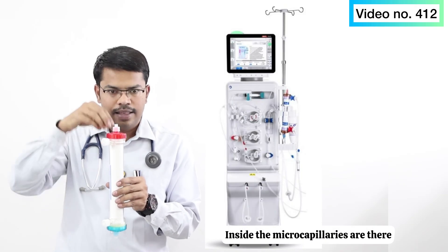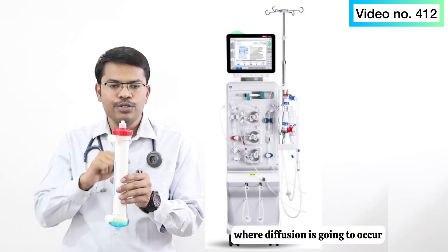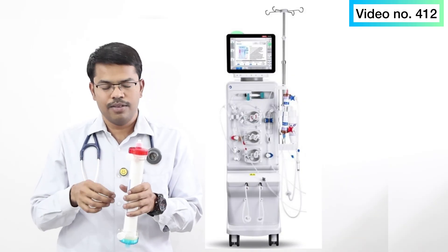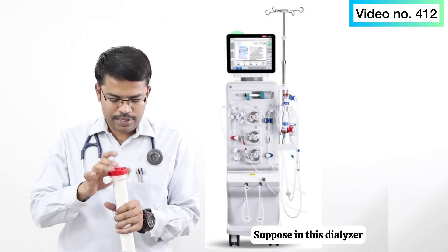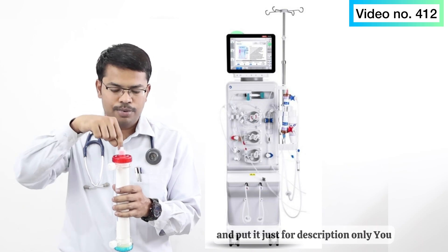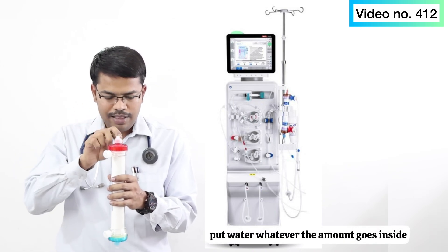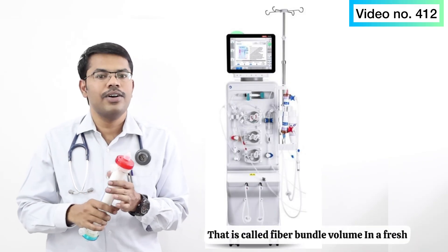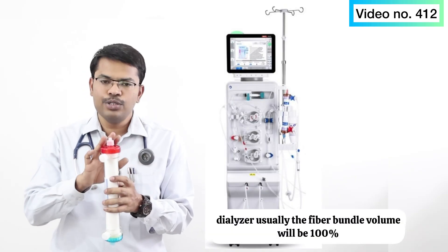Inside the micro capillaries is where diffusion occurs, and the volume of blood inside only the micro capillaries is called fiber bundle volume. To understand how to measure it: you simply fill the dialyzer with water — whatever amount goes inside the micro capillaries and stays there is the fiber bundle volume.